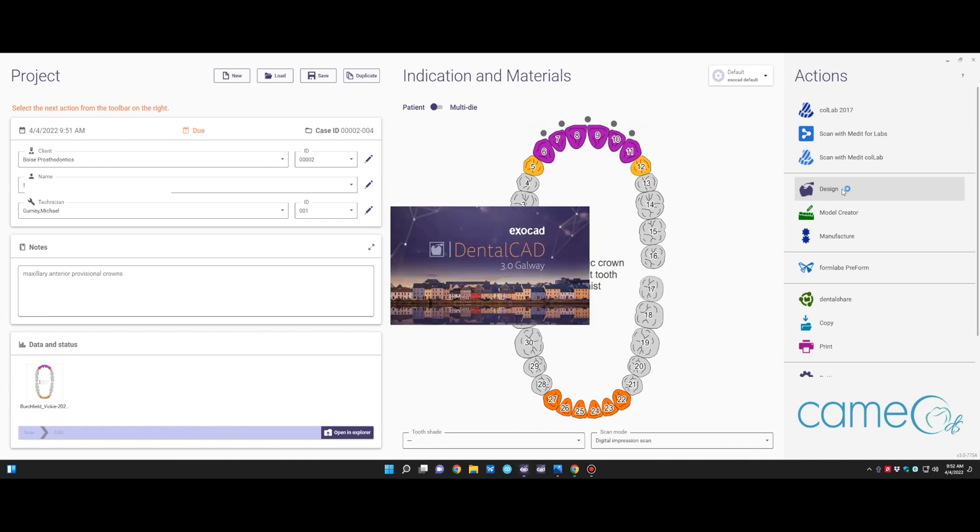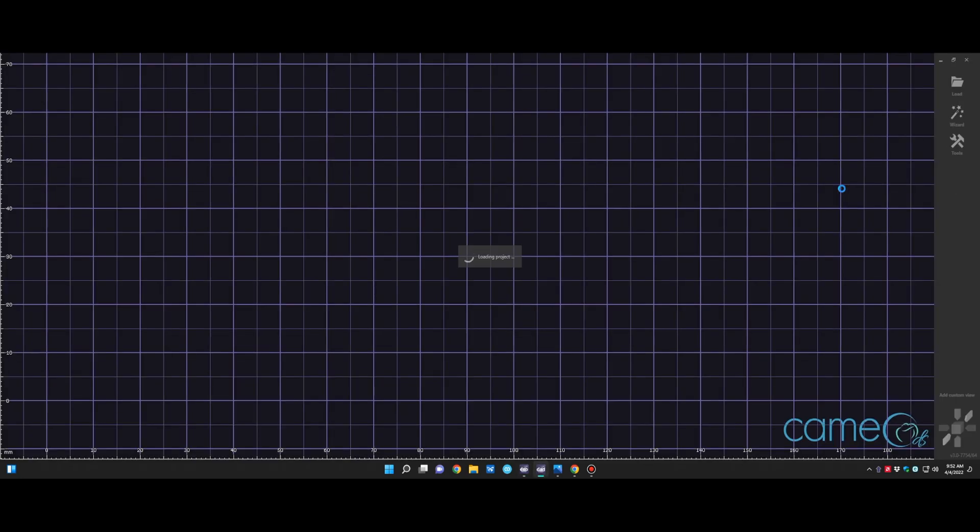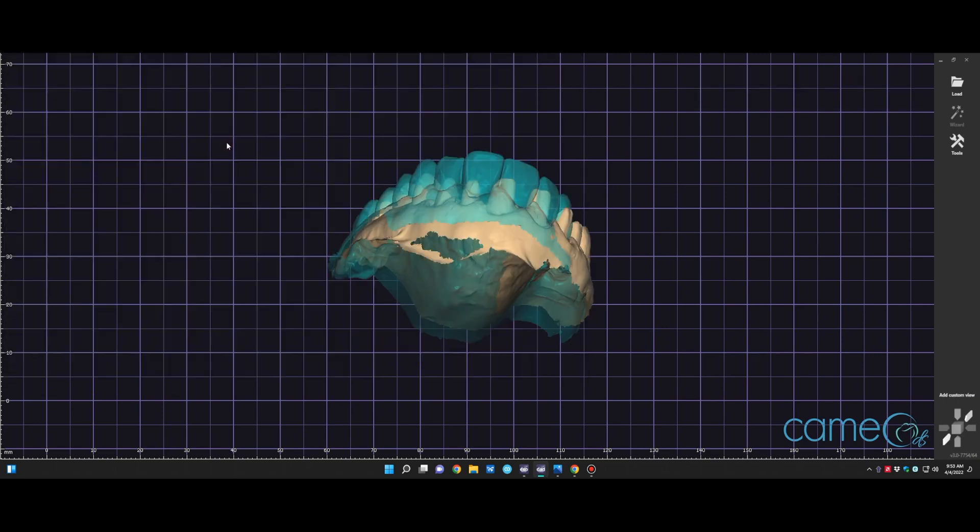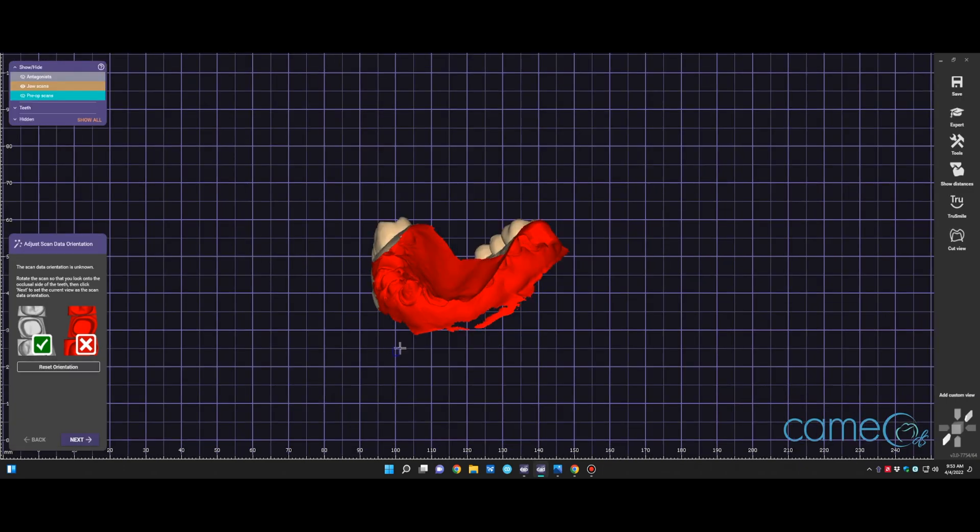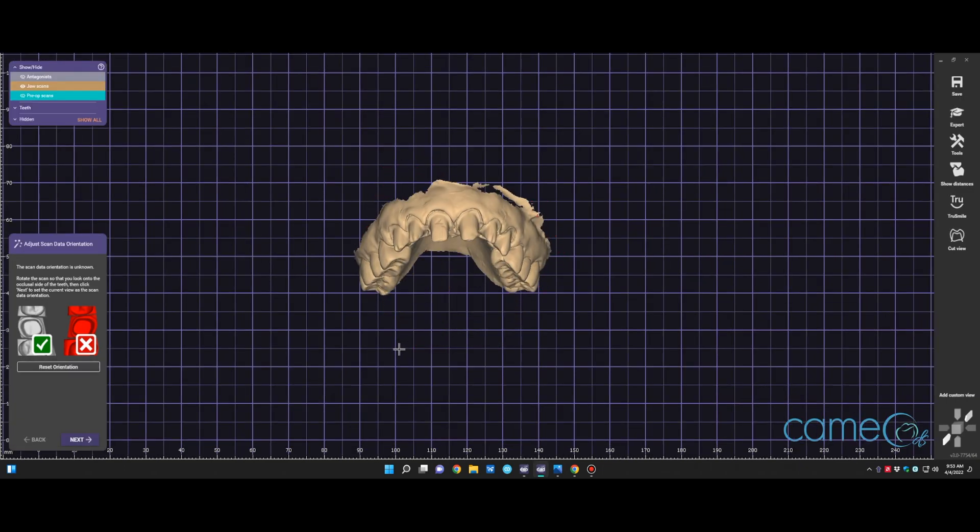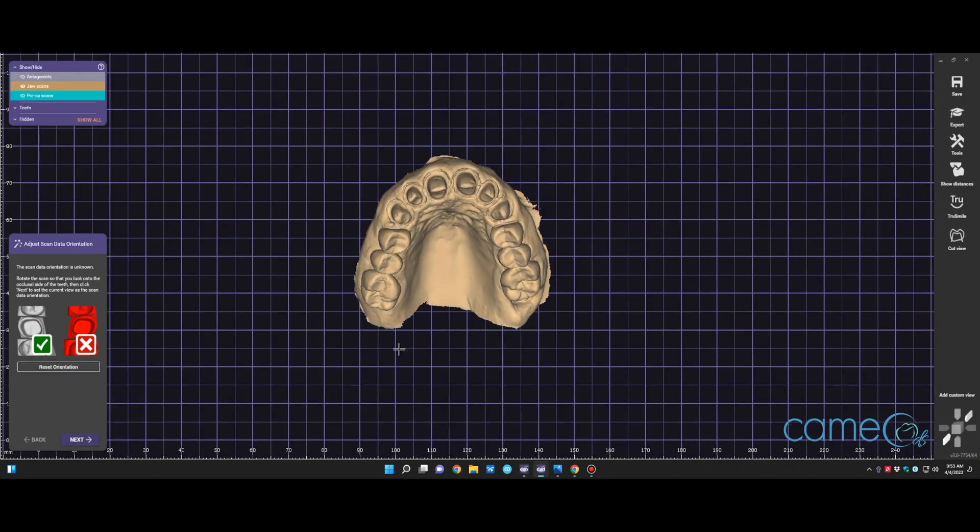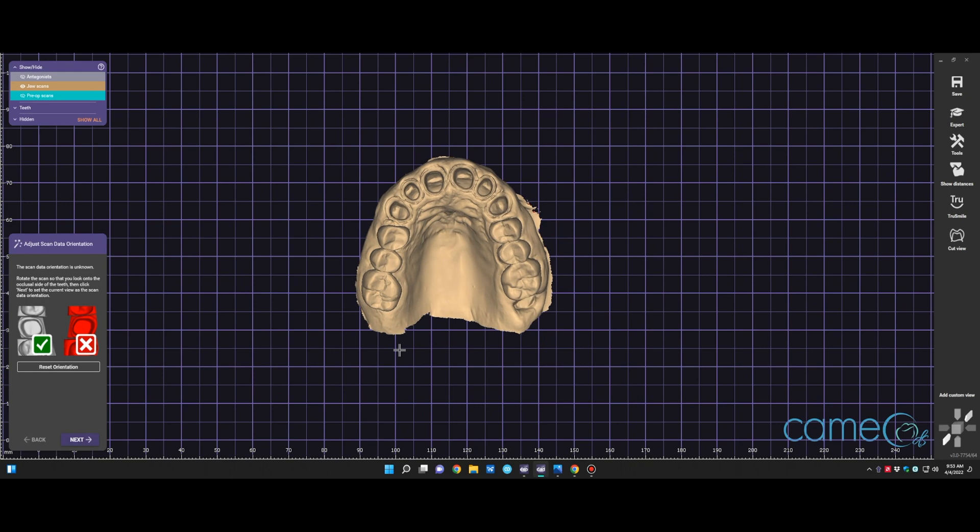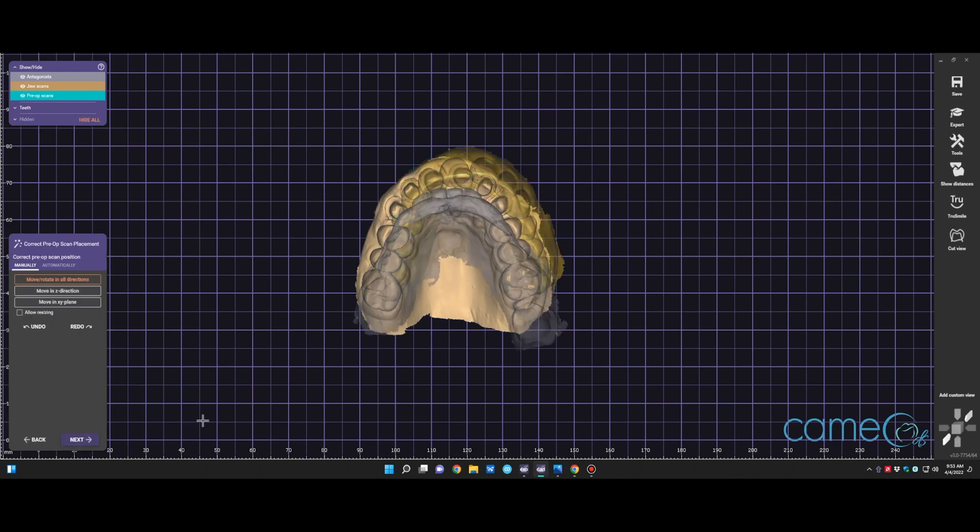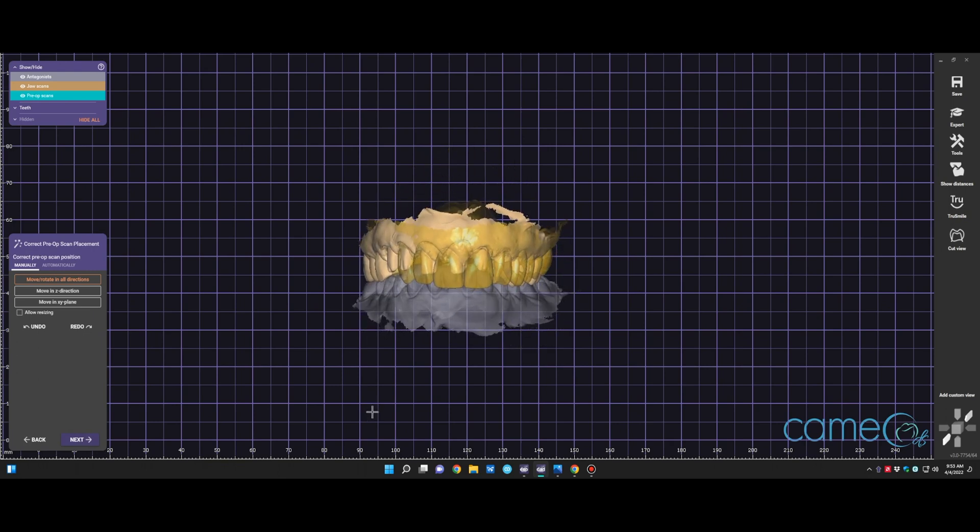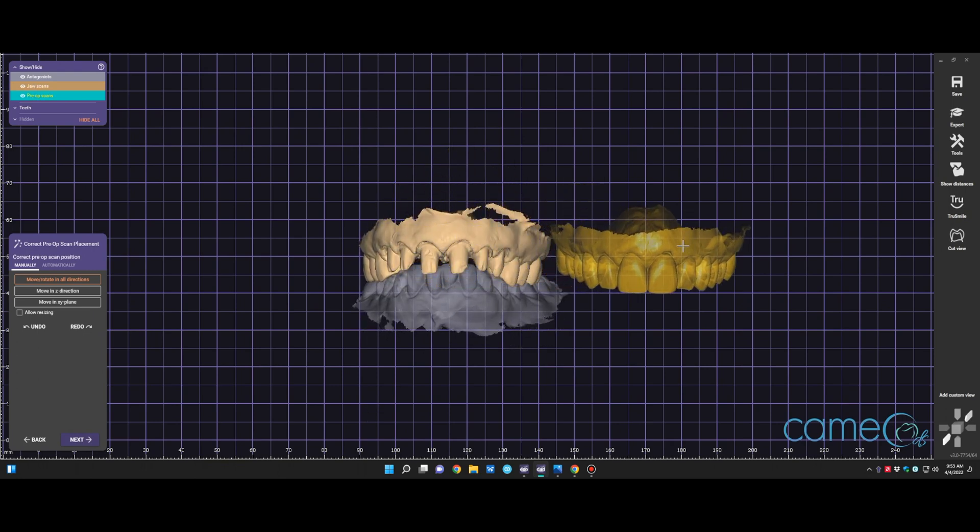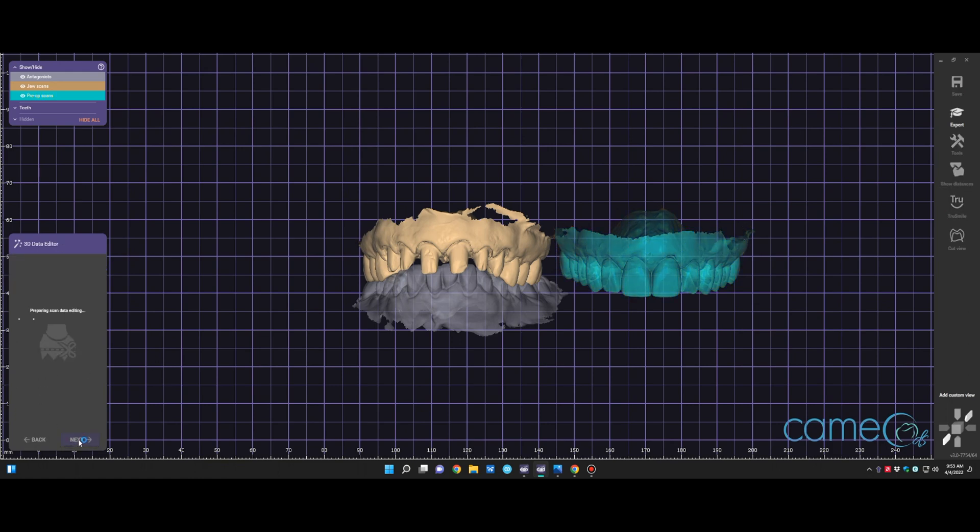So we click on design. After saving it, it will open up the CAD software. Once the CAD software is open, it will prompt us to find the proper scans. So you'll have to find in the O drive, in our case, the patient's scans. Then it'll walk through a wizard. The wizard will help you step-by-step design these crowns. Now you'll see that our pre-op is not aligned because we did not start with a pre-op. We're using a pre-op that we obtained before we did treatment.